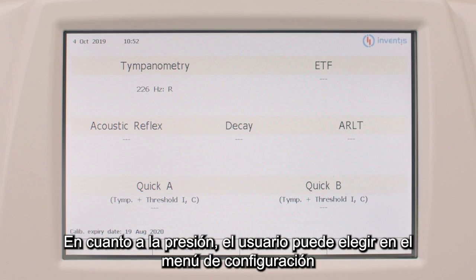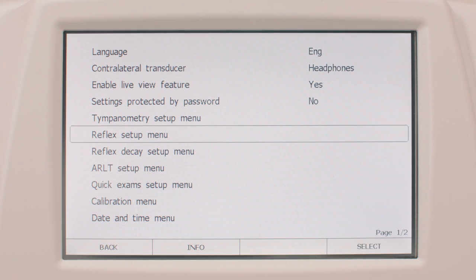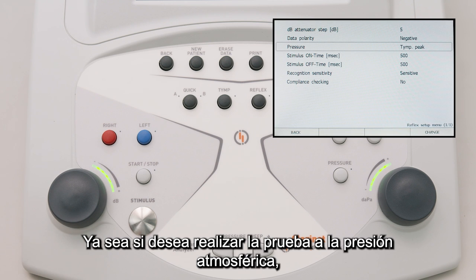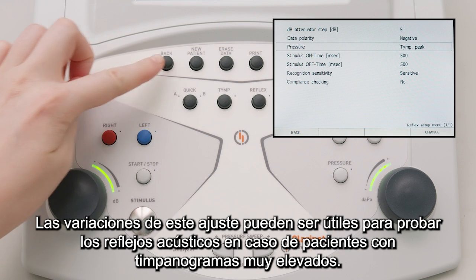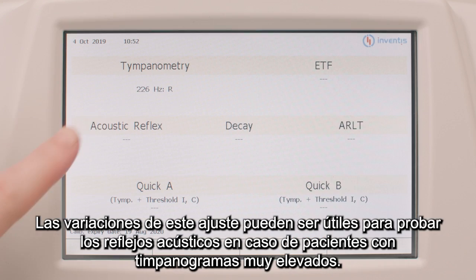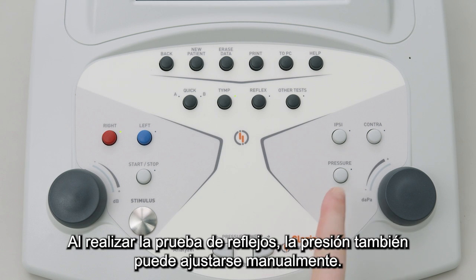In terms of pressure, the operator can choose from the setup menu of the instrument whether to conduct the test at atmospheric pressure, at the tympanogram peak pressure, or at the pressure value resulting from the difference between the tympanogram peak pressure and its width. Variations of this setting can be useful for testing the acoustic reflexes in the case of patients with very steep tympanograms. When performing the reflex test, the pressure can also be adjusted manually.